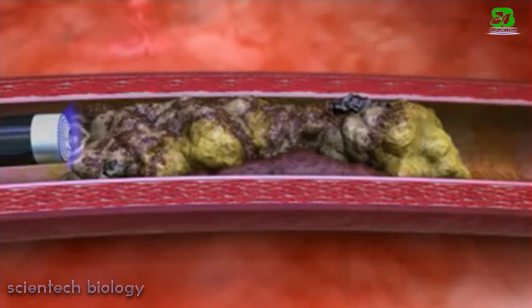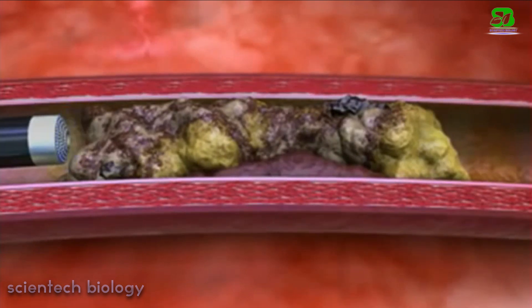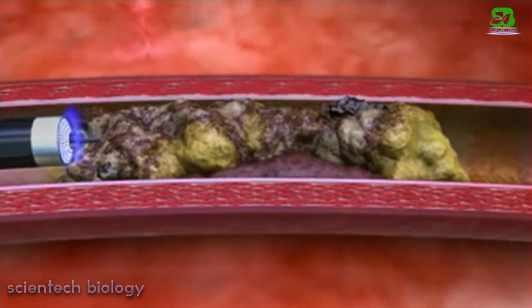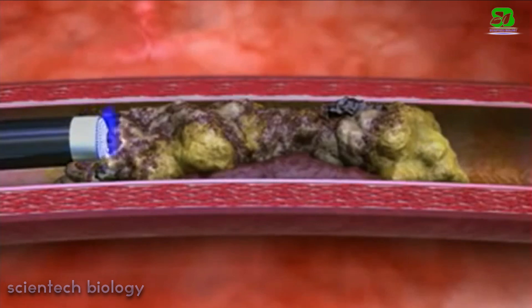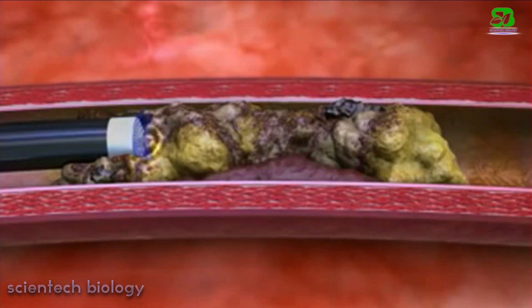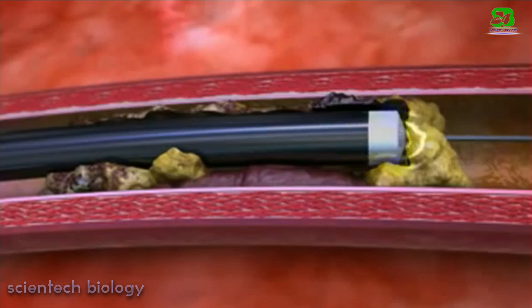In laser angioplasty, a laser emitting catheter is inserted into an artery. Once there, the laser is turned on and pulsating beams of light are directed towards the plaques. The plaques vaporize into gas particles layer by layer, thus reducing the blockage in the artery. This technique is not used as frequently by doctors as other angioplasty procedures.